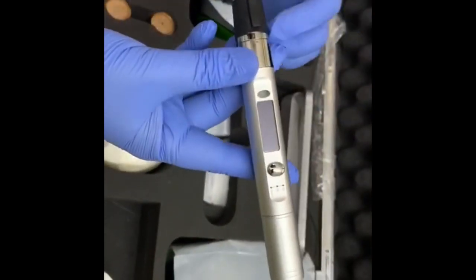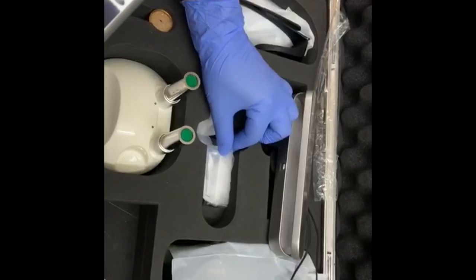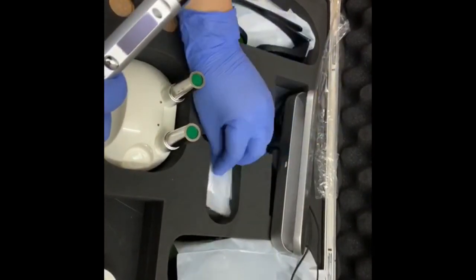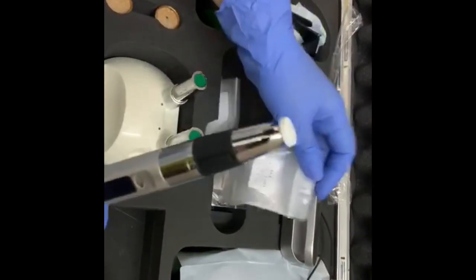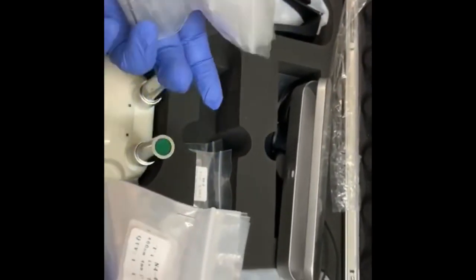This is your main body. This is your cover. They have some 20 tips. 10 are for NF-04 and 10 tips are for N4-13. So these are the universal tips.